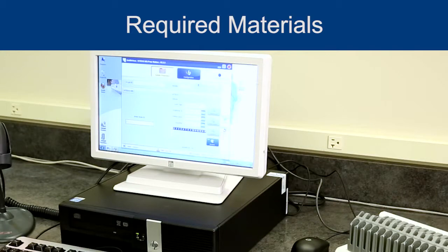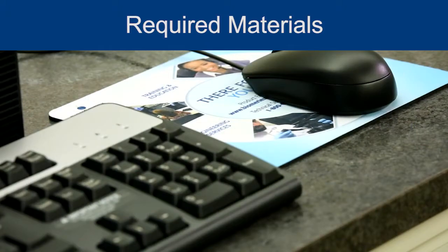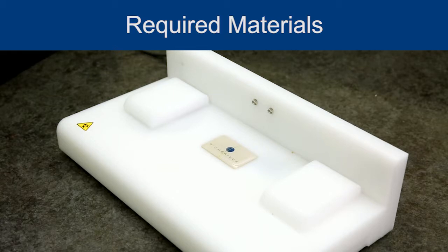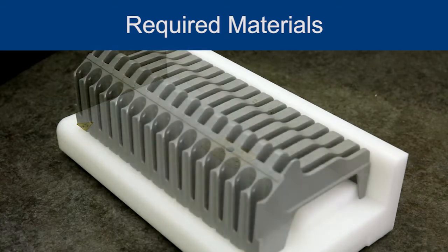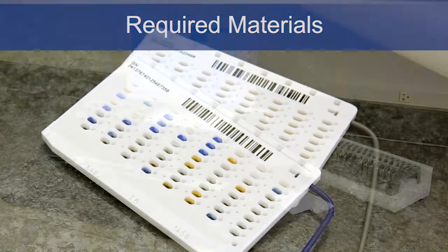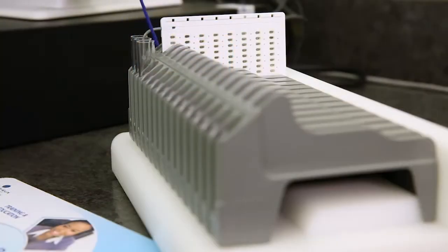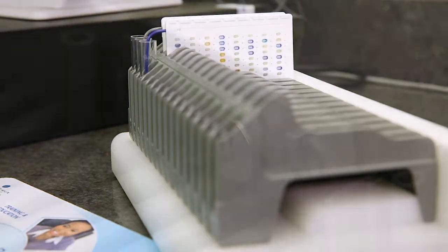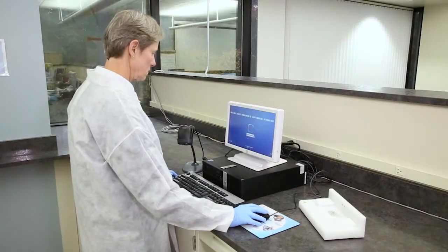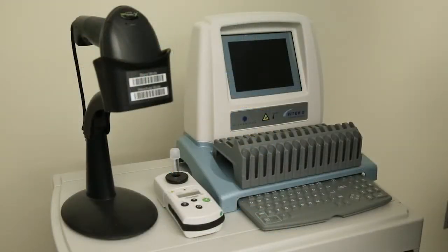Required materials: a computer with VITEK PrepStation software, a monitor, a keyboard and mouse, a barcode scanner, a cassette docking station, also referred to as the VITEK MS PrepStation hardware, a VITEK 2 cassette with button memory module, and VITEK 2 test cards. The VITEK MS PrepStation software with a connected cassette docking station can be used to link specimen information to VITEK 2 test cards. This information is then transferred via the cassette memory button to the VITEK 2 system. The VITEK MS PrepStation software with cassette docking station is used in place of the Smart Carrier station.